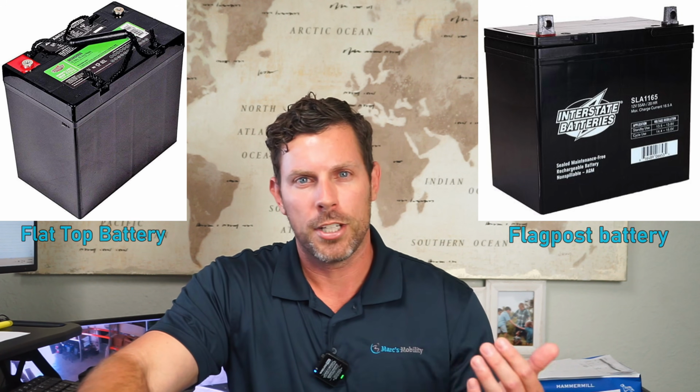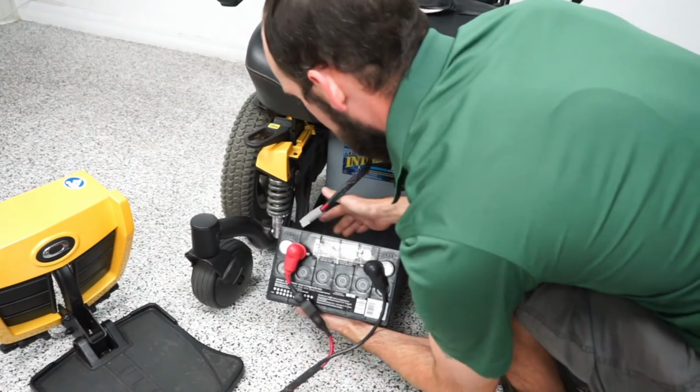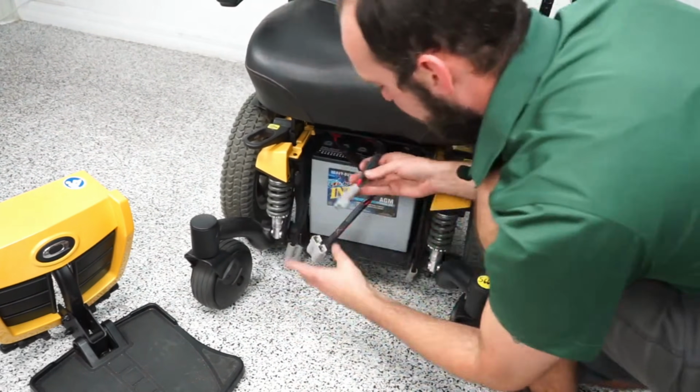Now on the Quantum Edge HD, you need 75 amp batteries. And I would mention to you as well, MK batteries, 75 amps, fit in the Edge HD, but with some battery manufacturers, depending on where the lead posts are, it could create an issue with sliding the battery in. So once again, if you are going to buy batteries for the Quantum Edge HD, I would look at the MK brand or look at recessed post 75 amp batteries for the Quantum Edge HD.